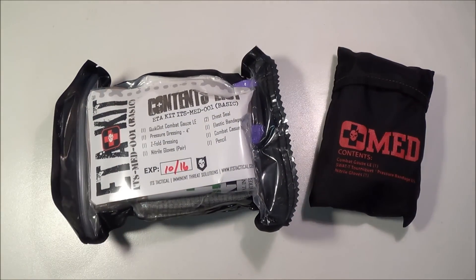I've been getting some questions lately about what I should carry — I want to make a trauma kit for my everyday carry setup, what should I get? Well, one of these is going to excel in that department more than the other, but I think they're both excellent options. If you just want to go ahead and buy an already-made trauma kit and not have to go around searching, these are great.